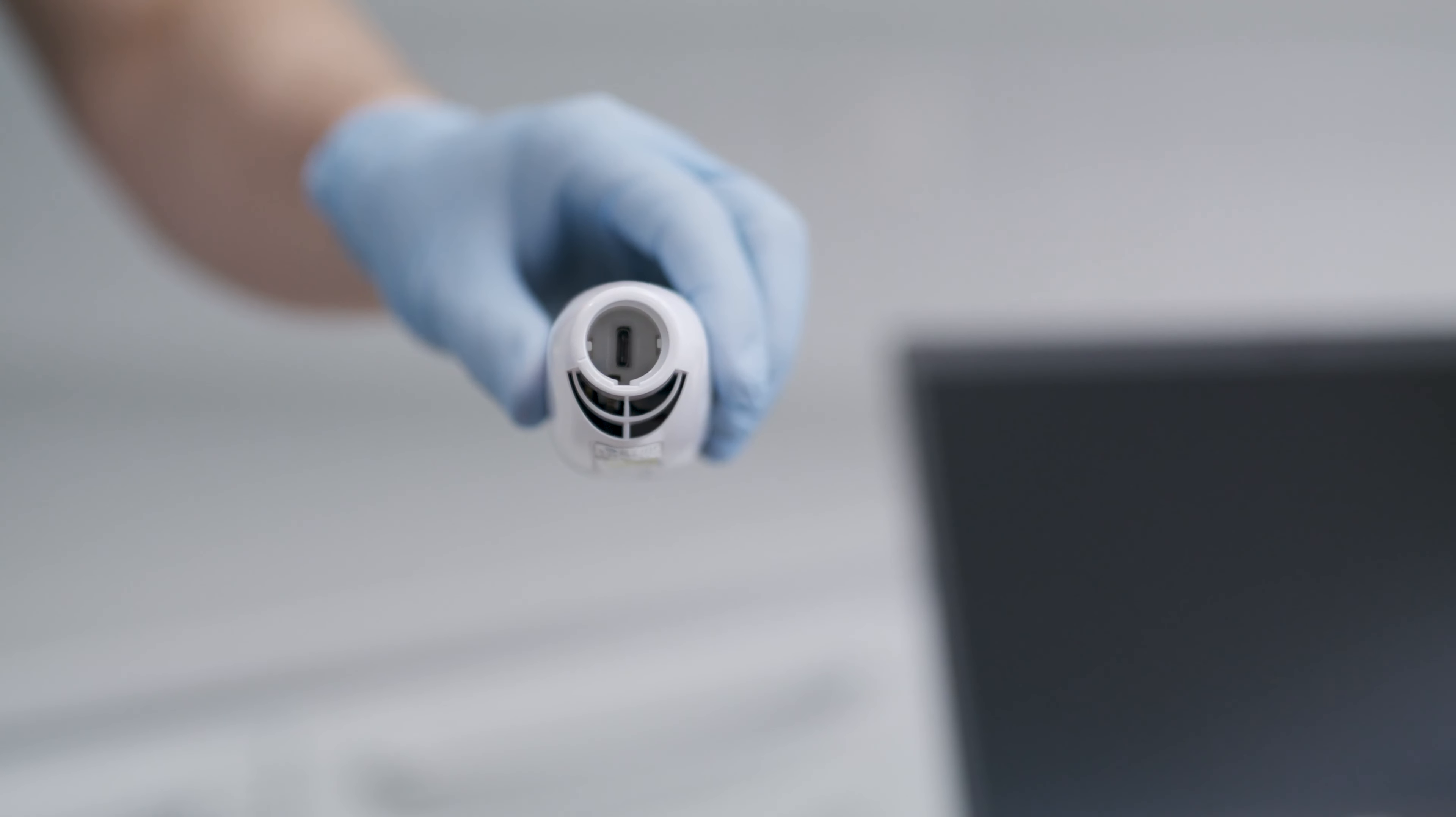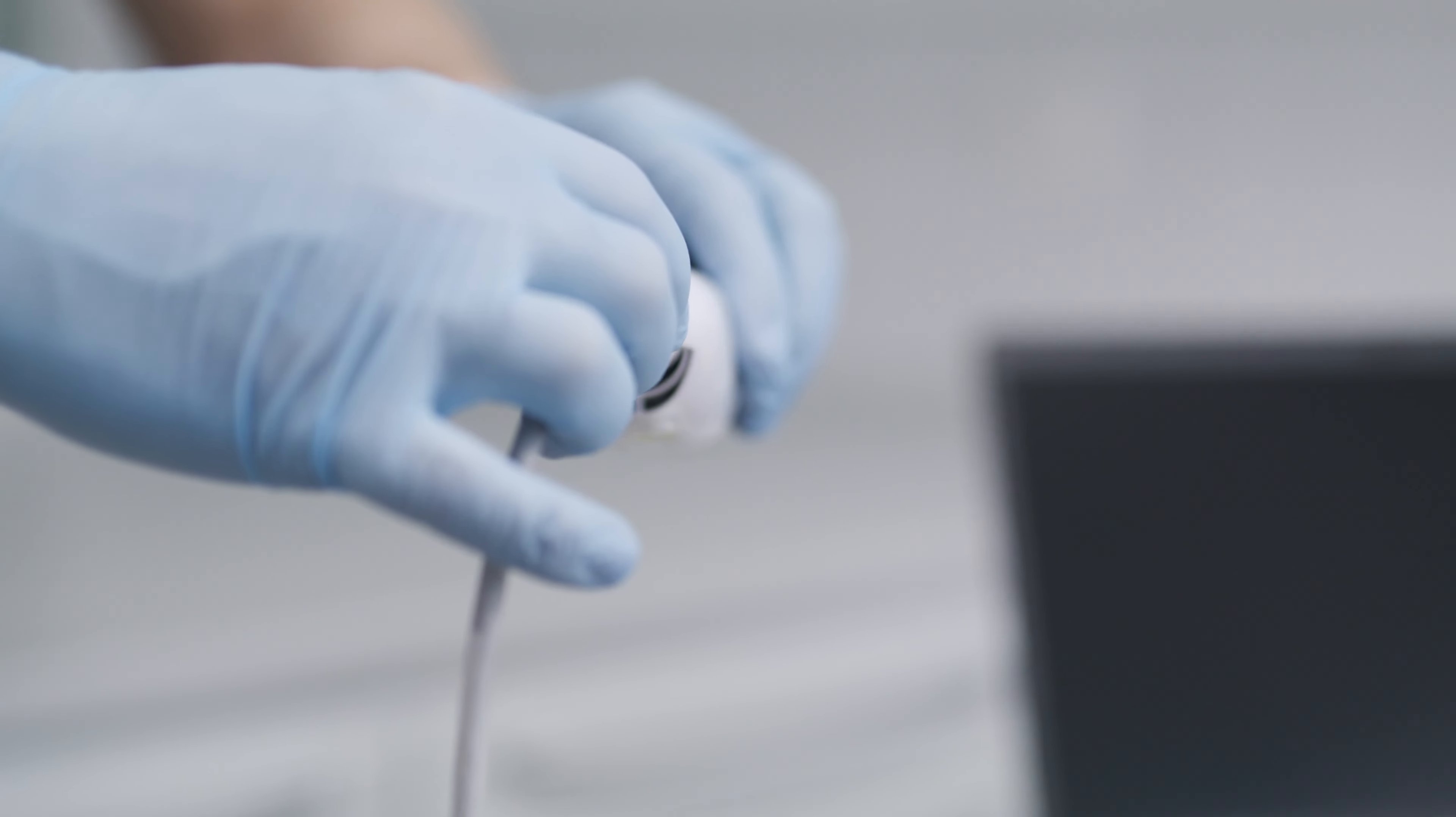Connect the scanner connection cable to the back of the scanner. Turn until the cable locks into place.